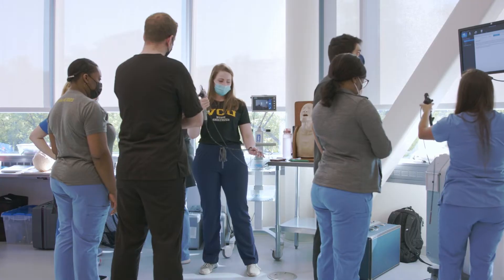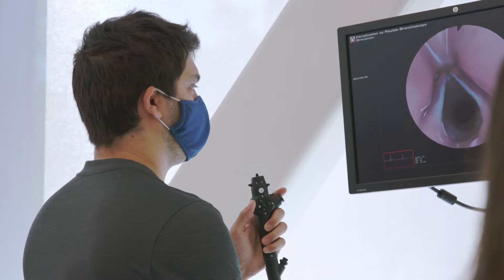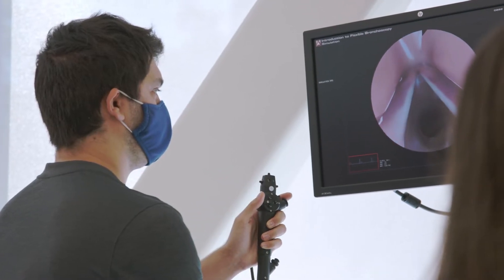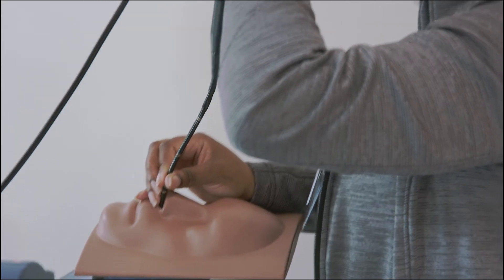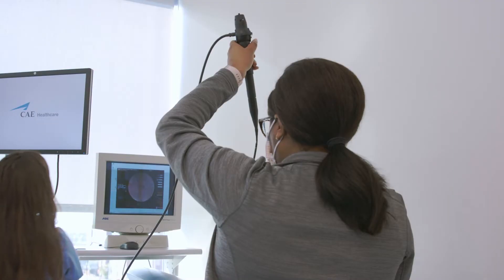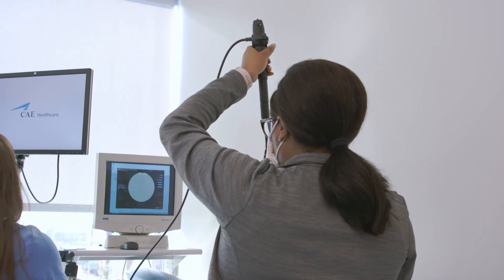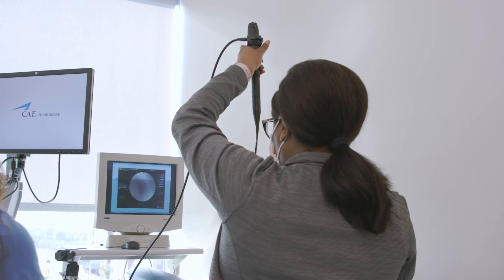Simulation for us comes in two forms: static and dynamic. Static simulators are also task trainers — it's one piece of anatomy that we can do the same procedure on over and over again. For most of the technical skills of a CRNA, we have a task trainer for it.